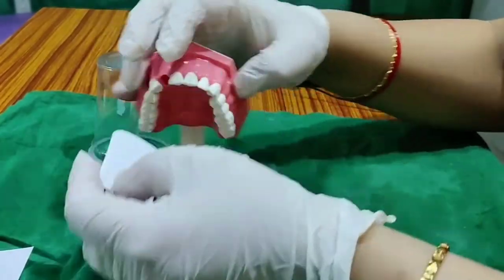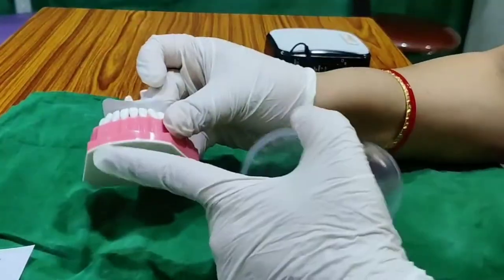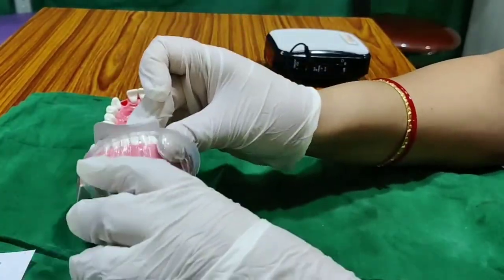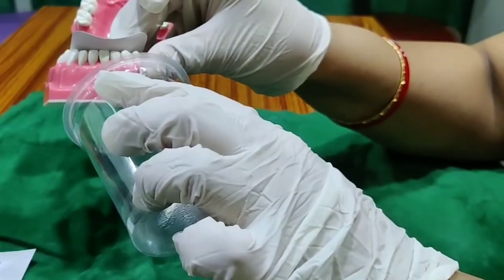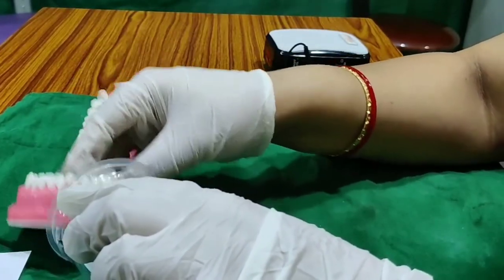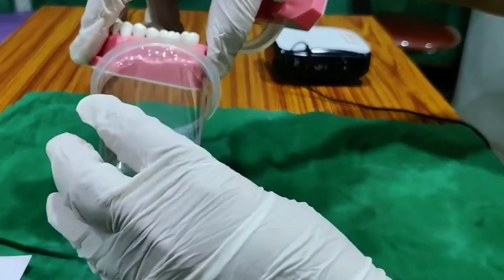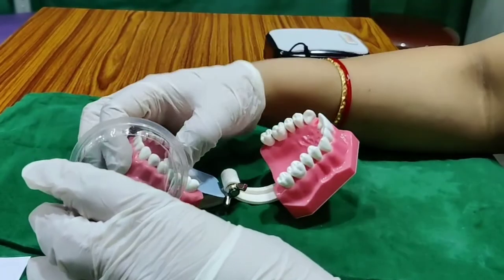Now for the lower arch, the raised dot should be above. For the lower, take guidance from the base of the mandible at the chin. The angulation for lower anteriors is minus 20 degrees — the cone goes below. For the lower canine, it is minus 15 to 20 degrees. For lower premolars, it is 10 degrees. For lower posteriors (tooth 6), it is 5 to 10 degrees — focus along the base of the mandible and keep 5 to 10 degrees angulation.